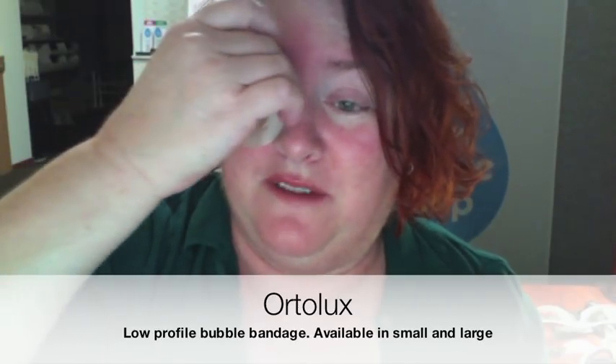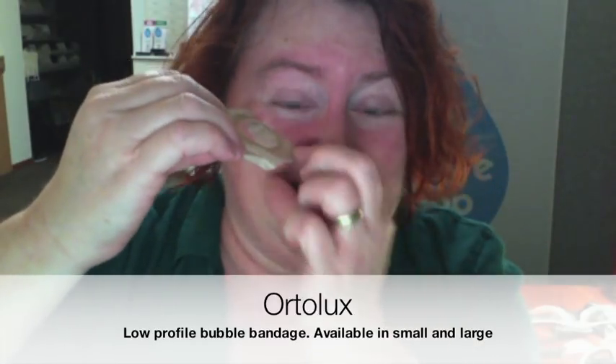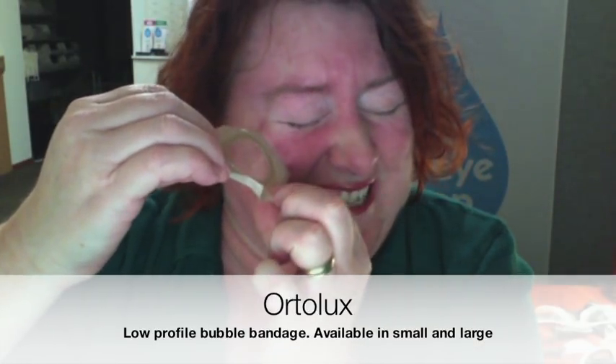So that's not too bad of a daytime solution, though most people would use these at night. The downside to the Ortolux is the adhesive — maybe I'm just biased, but personally I just find it horrible on the skin, just painful. Funny thing is it's the same adhesive they use on kids' patches. I just can't picture it on kids' skin — yikes.